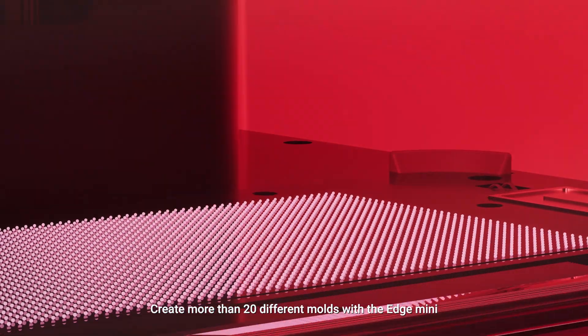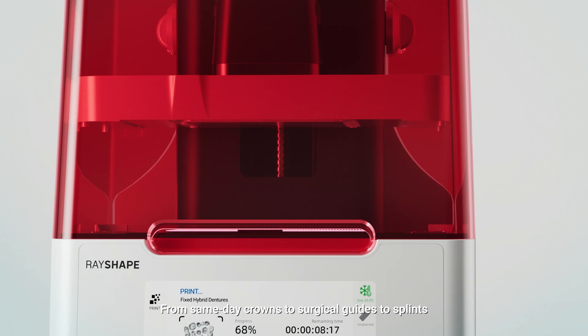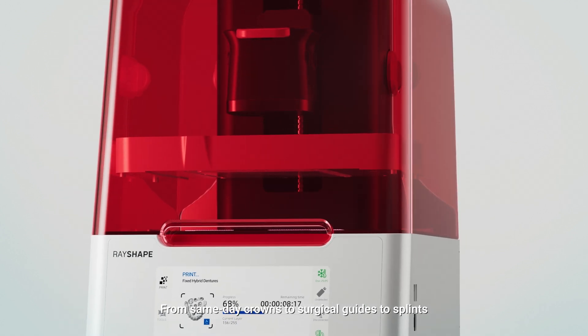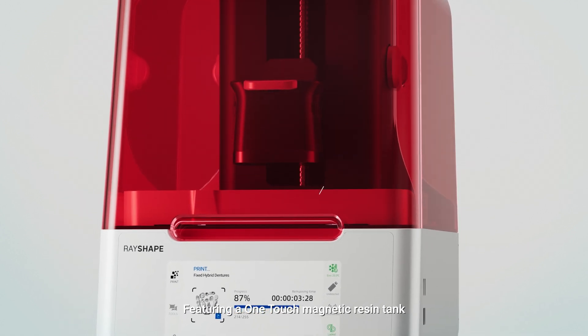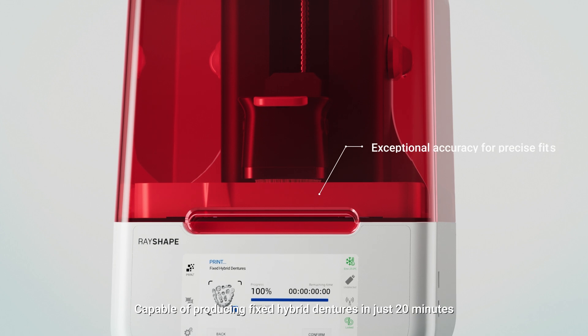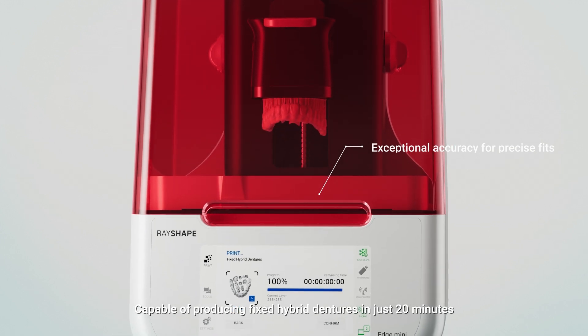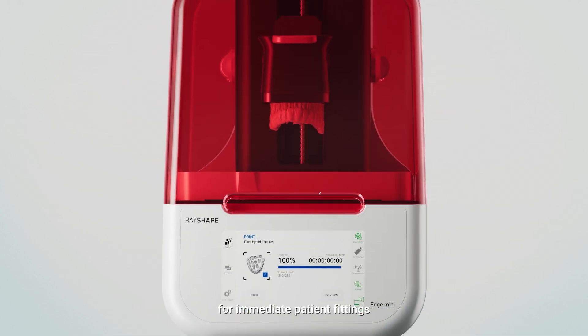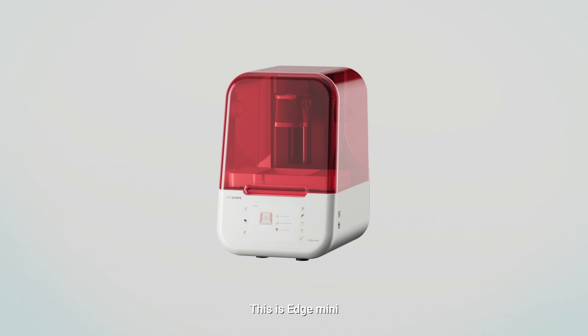Create more than 20 different molds with the Edge Mini. From same-day crowns to surgical guides to splints. Featuring a one-touch magnetic resin tank, capable of producing fixed hybrid dentures in just 20 minutes for immediate patient fittings.